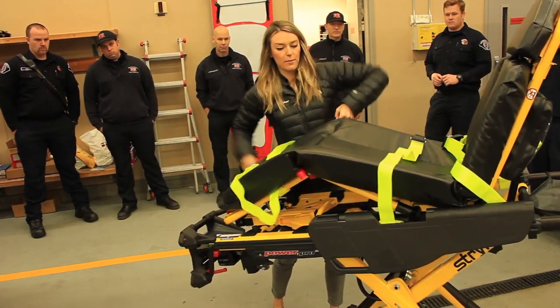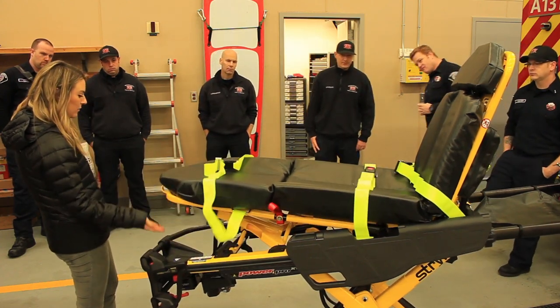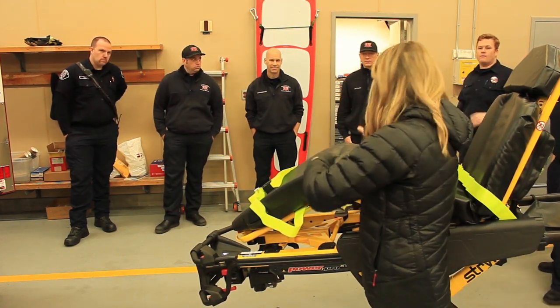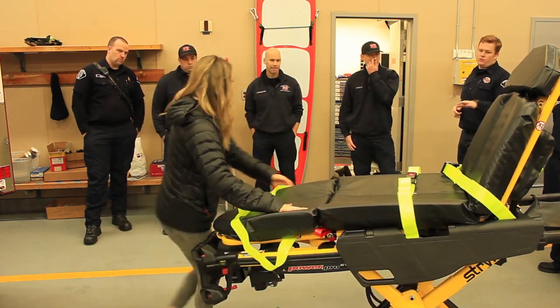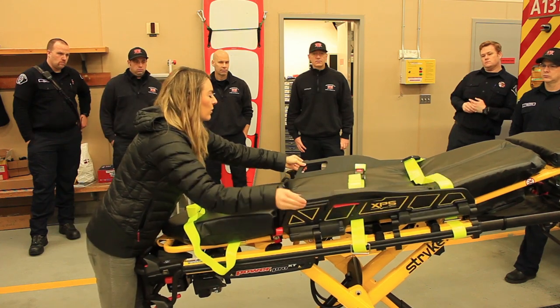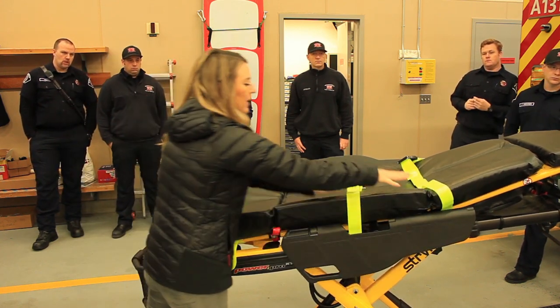These red straps — lift up on either one or both of them. It means you don't have to stuff pillows underneath anymore, and it gets the patient's feet out of your face when loading and unloading. That's called knee gatch. The release is right down here — just pull up. When somebody's legs are on here it can be heavy, so I'd recommend putting it up before somebody gets on, or just be ready to lift their legs. You also have side rails. They fold down, and in the lowest position you get 38% more surface area on the cot. There are seven different locking heights to bring the patient's weight back toward the center of the cot.